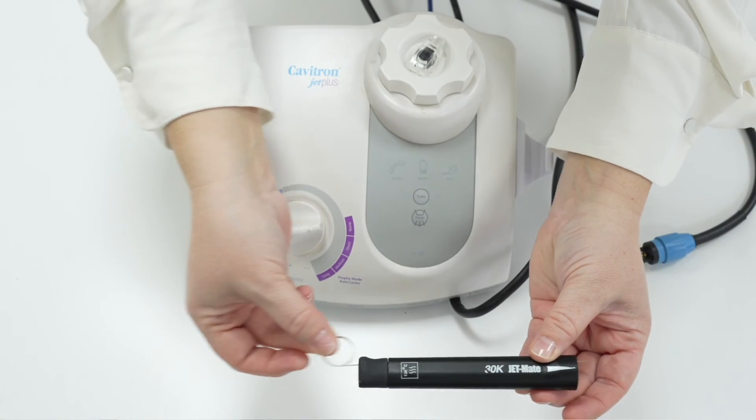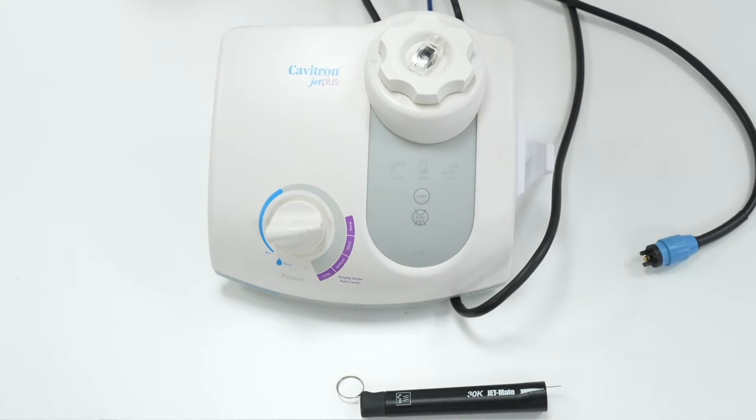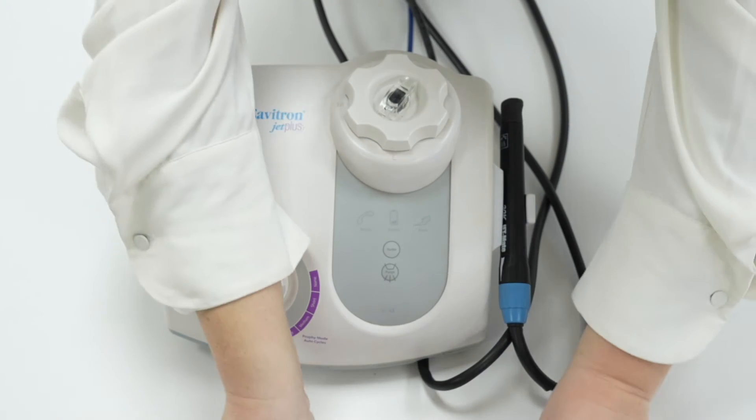So check with the jetmate rod. If the jetmate is clear, then check the profi insert is unblocked with the profi cleaning tool.